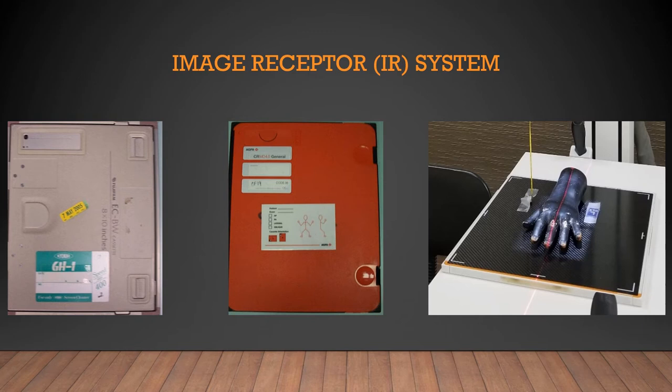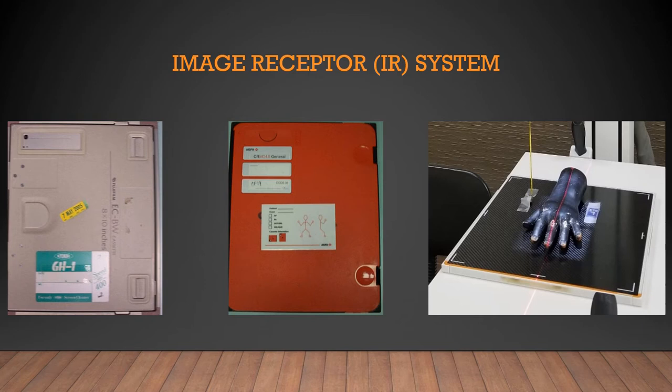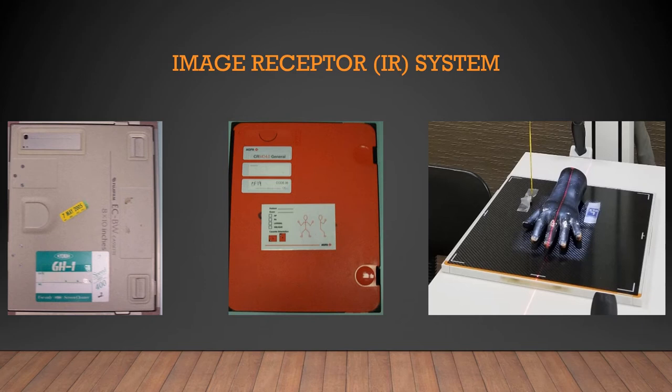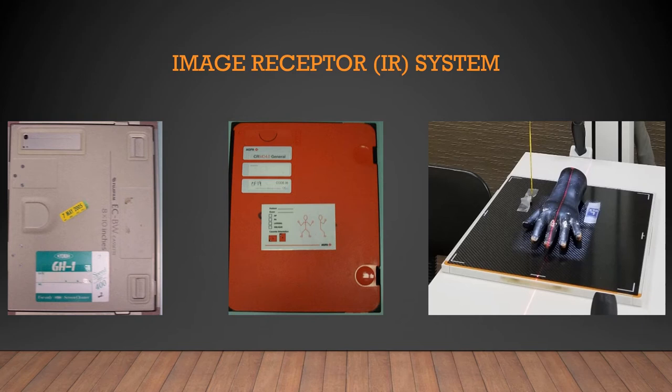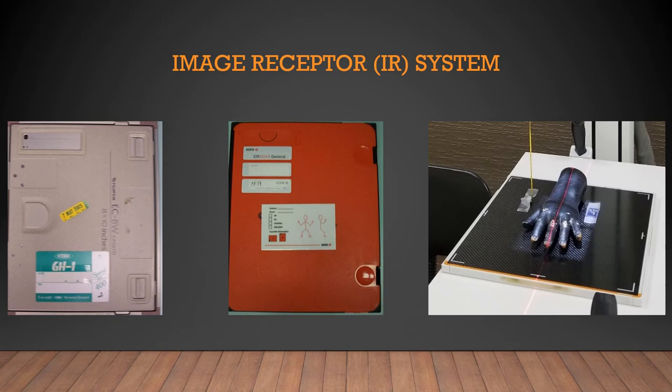The coupling element transfers the x-ray generated signal to the collection element during exposures. When picking up these different cassettes, you'll know right away what you have based on weight. The digital cassette is a very heavy cassette. It's also very expensive, but remember you're only using one. If you drop it, you can shock the image receptor, and if you shock it too many times, you'll start to see degrading of your image.